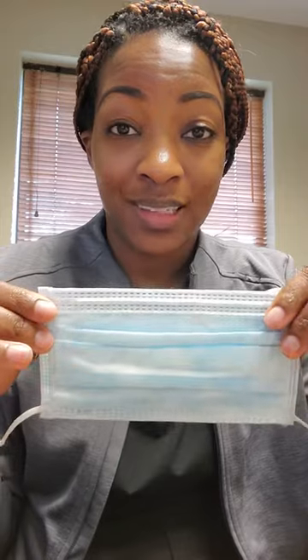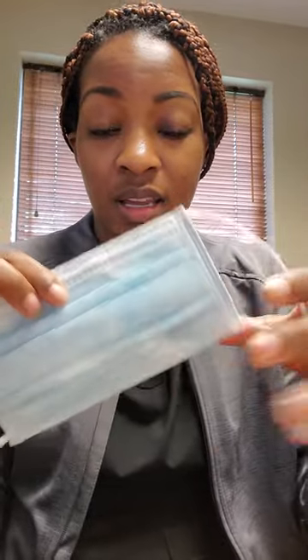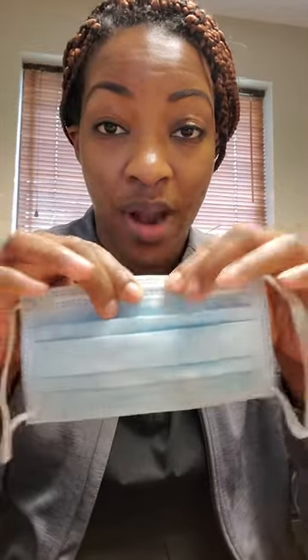With the facial coverings that people are making at home — the cloth ones — people don't do those incorrectly. They're covering their nose and mouth, which is its intention. But this one here, I see people do incorrectly. This is a surgical mask. It has loops for the ears, it is an accordion type style, and the very top has a flexible wire.